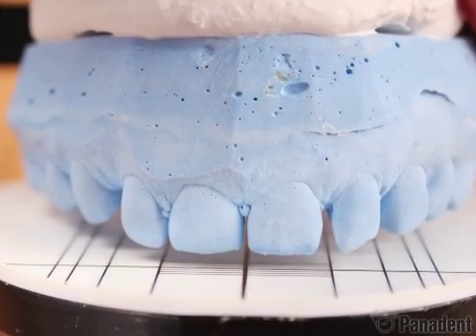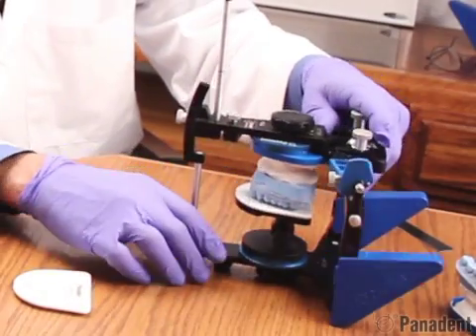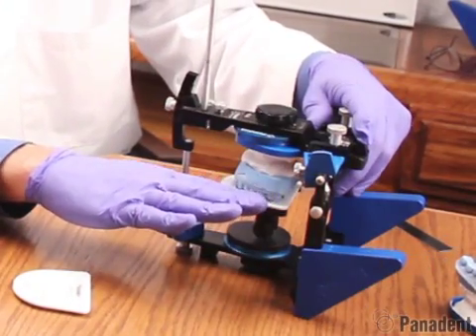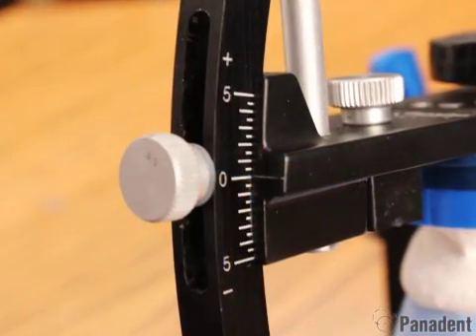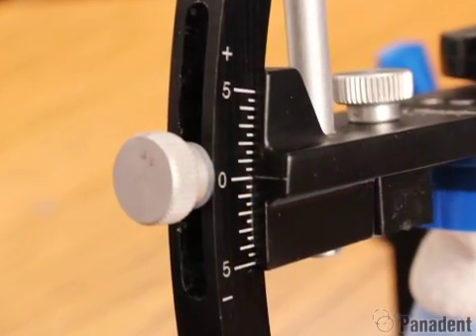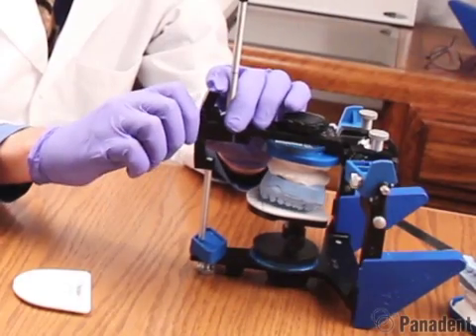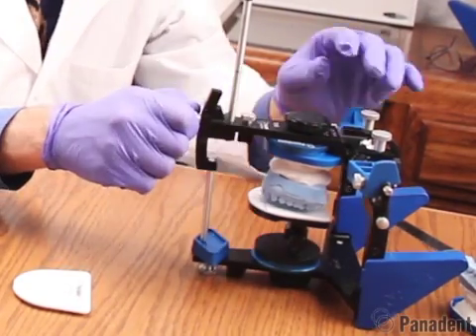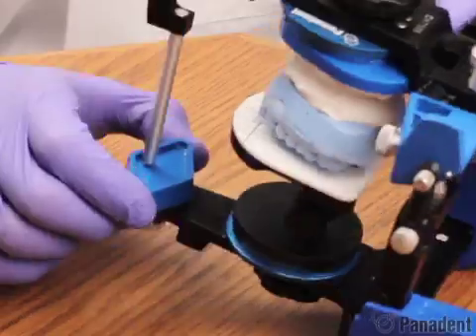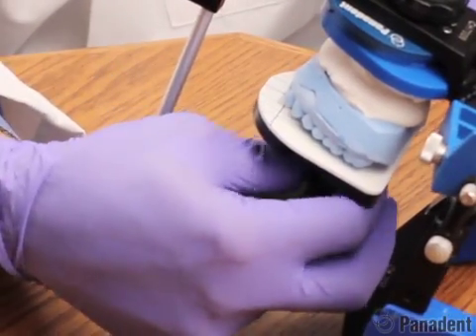Now if you would like to have a one, two, or three degree cant to the occlusal plane, you can adjust the incisal pin here. The incisal pin is calibrated in degrees. So if we raise the frame up one or two millimeters, we can raise the platform up to that position.